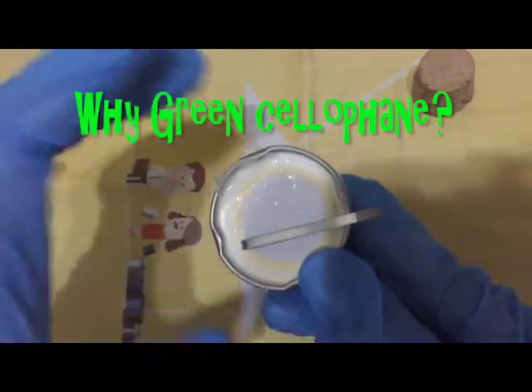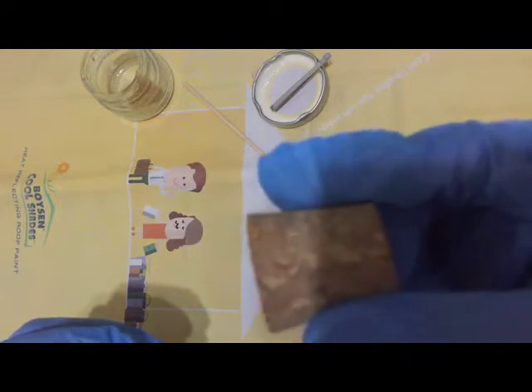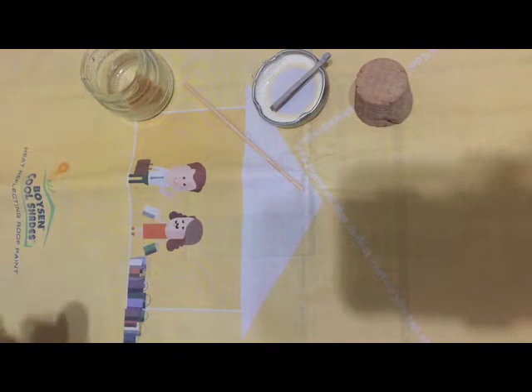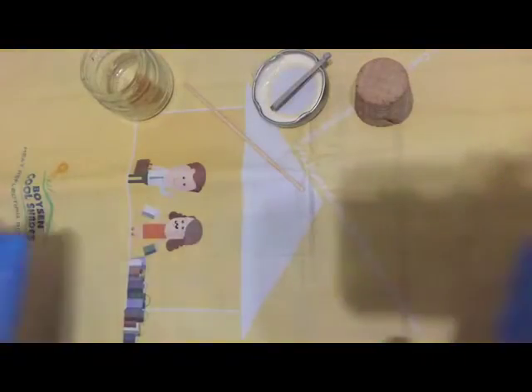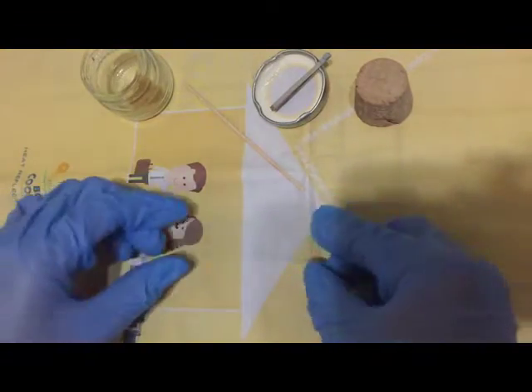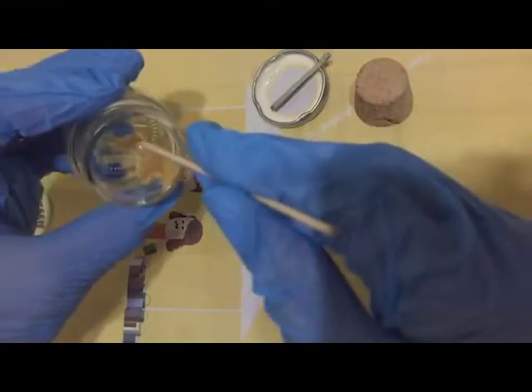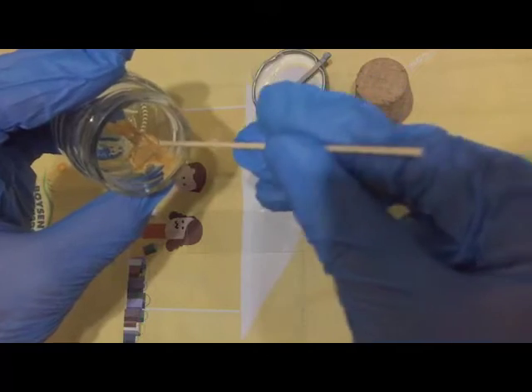...cellophane strip. You'd also need a rubber stopper or a cork, and of course, you would need your prep area. At the center of your clean microscope slide, place a stool sample the size of roughly half a corn grain or half a rice grain, like so.